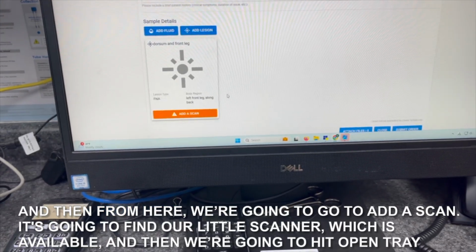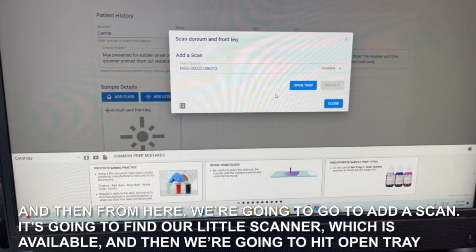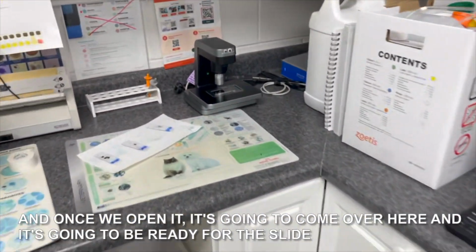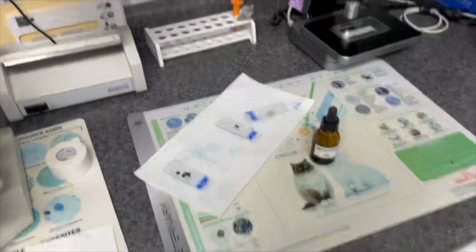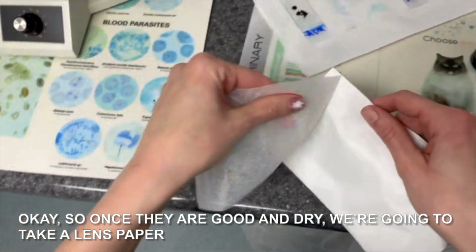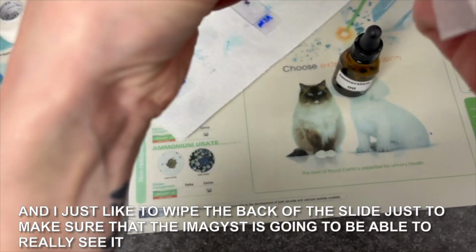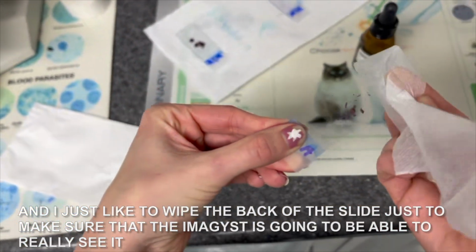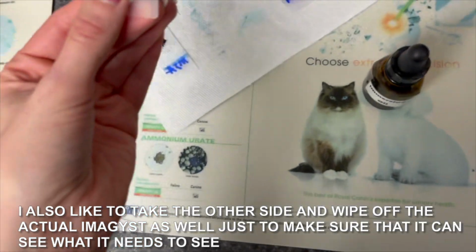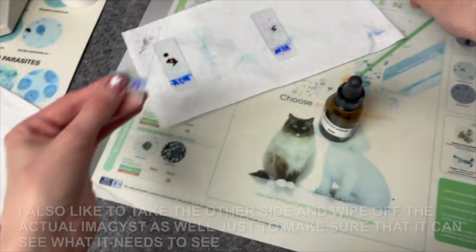And then from here, we're gonna go to add a scan. It's gonna find our little scanner, which is available, and then we're gonna hit open tray. And once we open it, it's gonna come over here and it's gonna be ready for the slide. So once they are good and dry, we're gonna take a lens paper, and I just like to wipe the back of the slide just to make sure that the Imagyst is gonna be able to really see it. I also like to take the other side and wipe off the actual Imagyst as well, just to make sure that it can see what it needs to see.